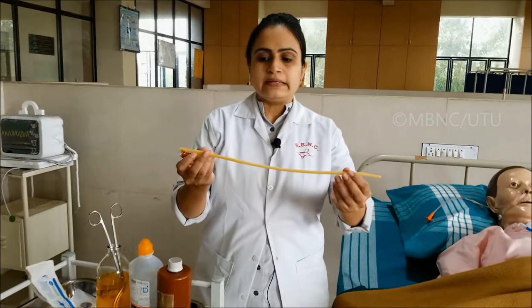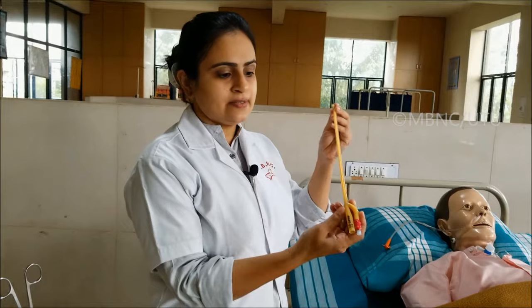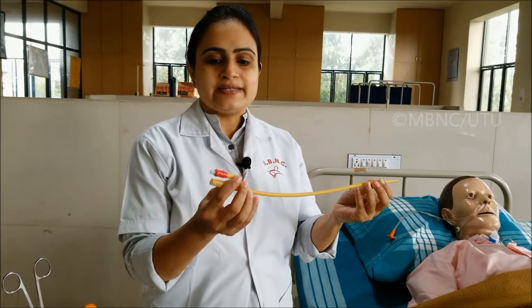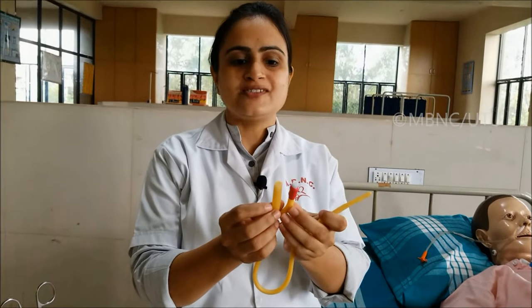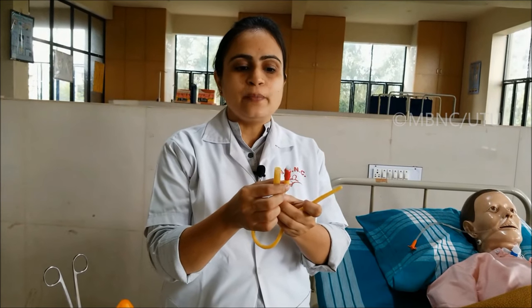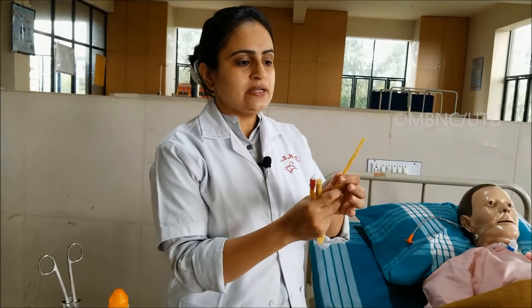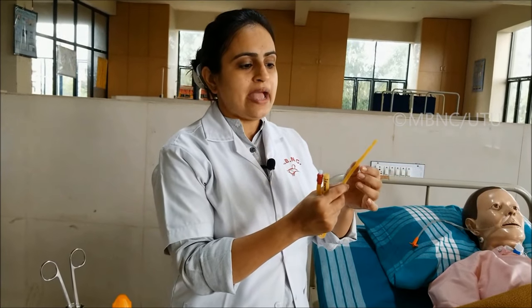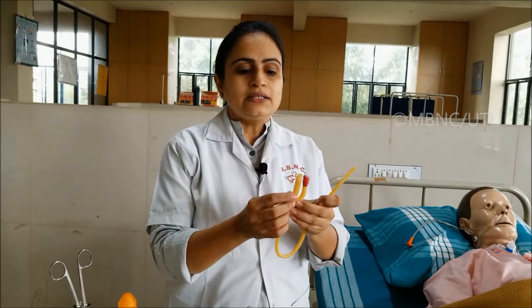This is an 18 French Foley catheter. There are two types: the 2-lumen Foley catheter and the 3-lumen Foley catheter. In the 2-lumen catheter, one lumen is for drainage of urine and the second lumen is for inflating the balloon. Here we can see the tip of the catheter and the inflating balloon. In the 3-lumen catheter, the third lumen is for irrigation purposes.